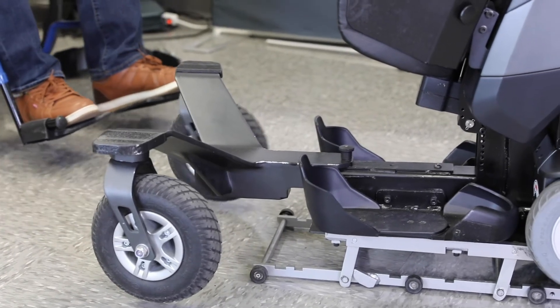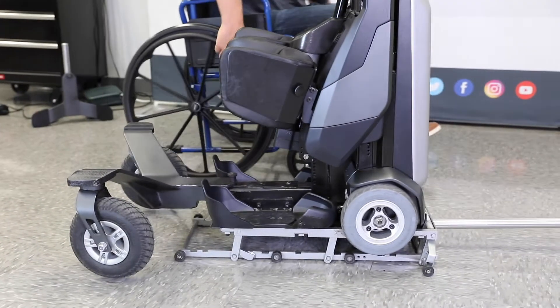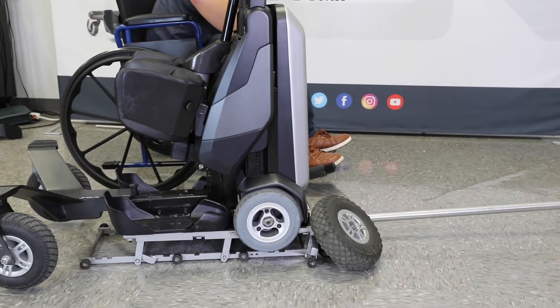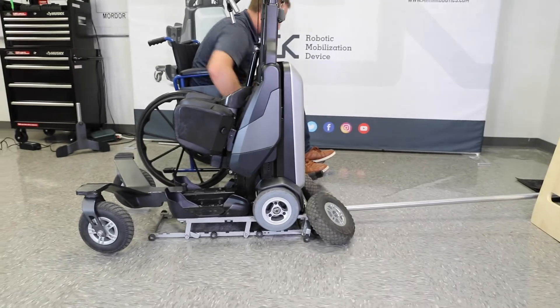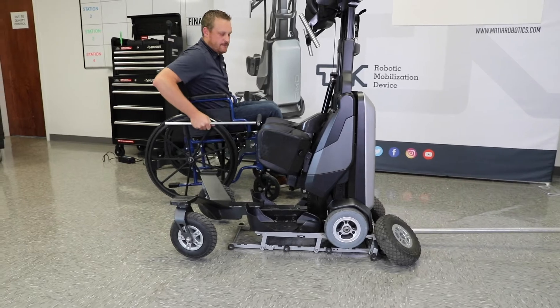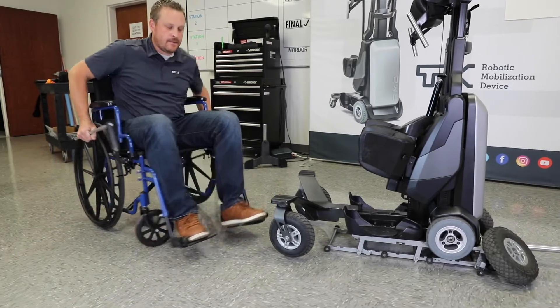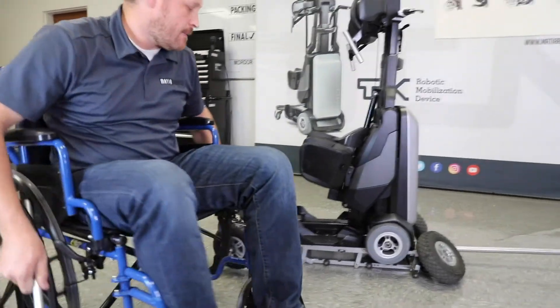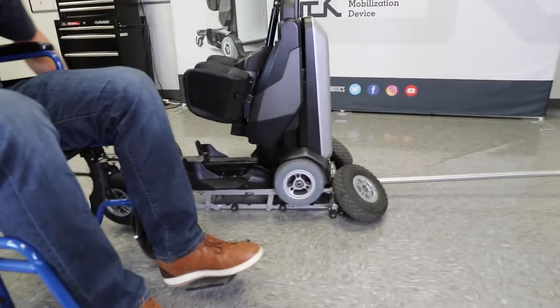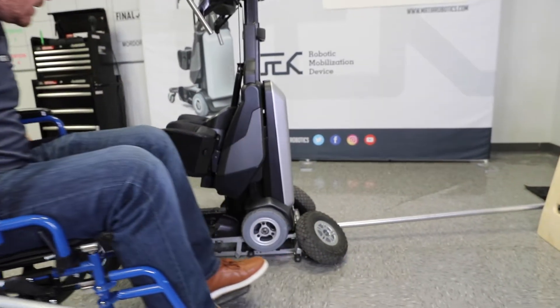So now I'm halfway done. I'm going to grab each of the wheels and I'm going to grab the tire wrench. The other thing I'm going to grab is the remote, and I'll show that in just a second.